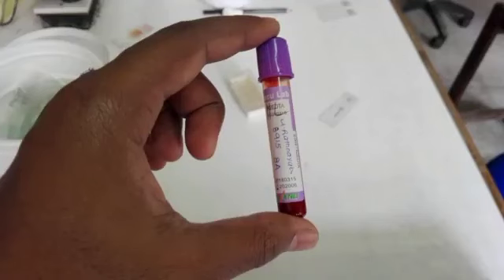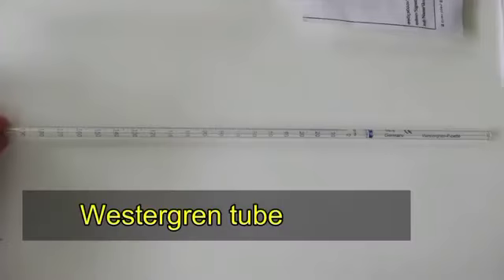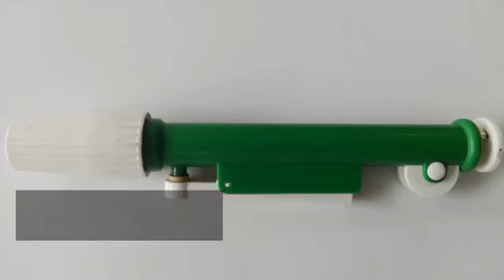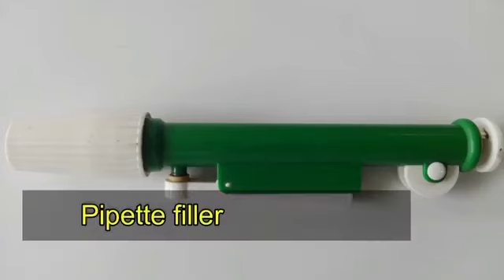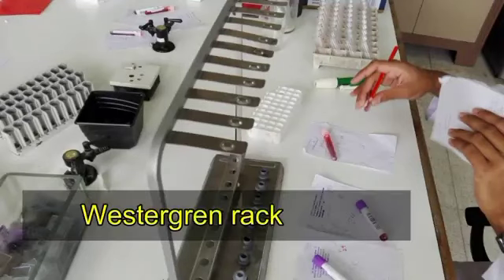Here the EDTA sample is not recommended for the ESR test. But if the venous blood is collected into an EDTA tube, practically we can perform the test. That means we can dilute the sample with 1:4 ratio of trisodium citrate again, then we can do the ESR. Then the requirements. Here we need trisodium citrate anticoagulant, Westergren tube, rubber bulb or pipette filler, a stopwatch and a Westergren rack.